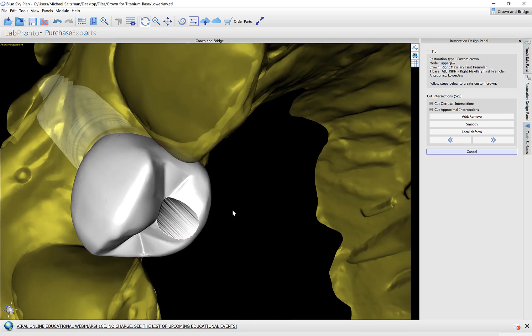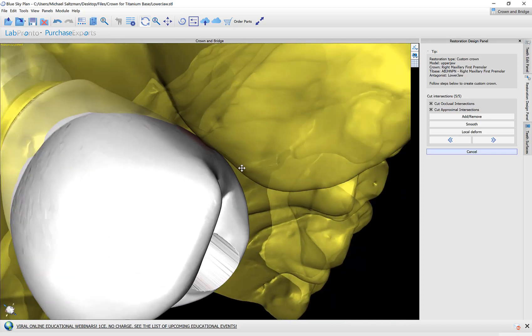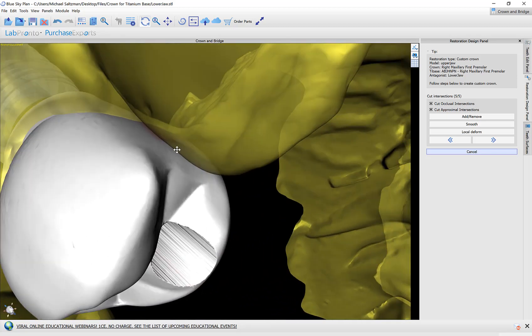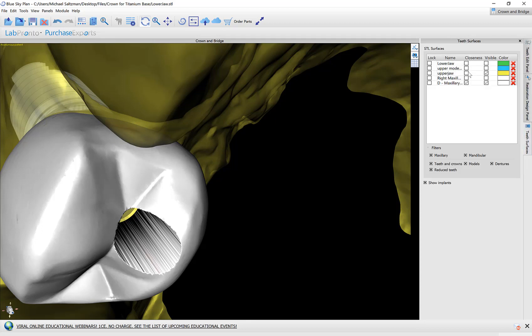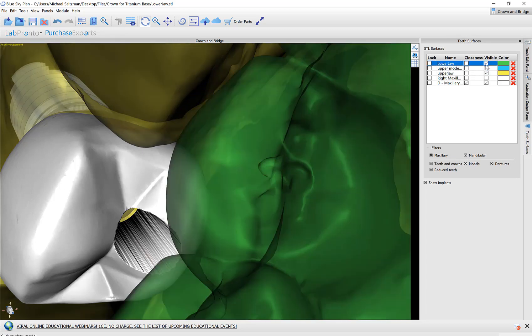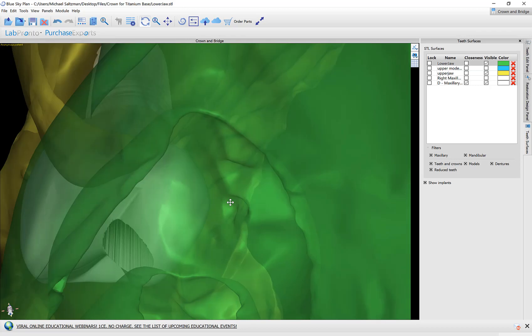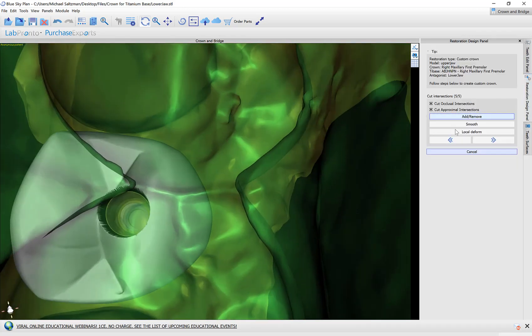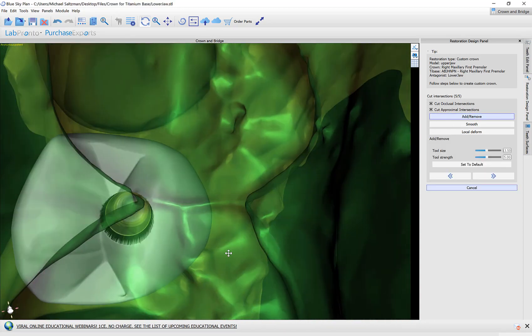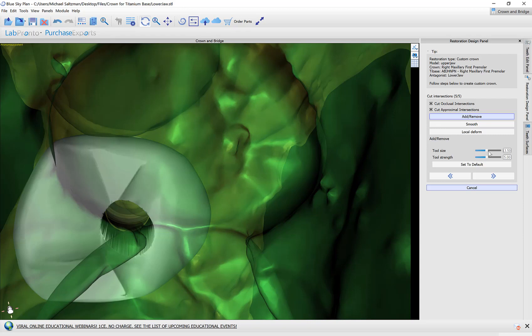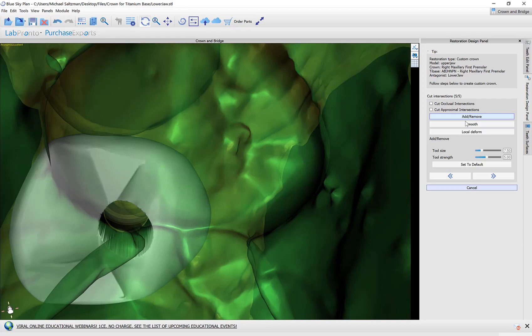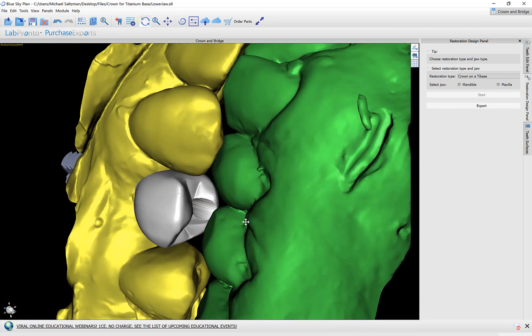In the final step we are able to fine-tune the crown. We can see that our contacts has been highlighted in red to show us the contact. We could use the editing tools if we want to go ahead and edit the tooth and change that. You can also turn on the opposing arch if you wanted to see how the tooth protrudes or contacts with the opposing arch. And you can actually use the editing tools from this view as well. So if there was a contact that you wanted to reduce then you can just hold down the shift key use your left mouse button and go ahead and edit that. We also have the option of having the software automatically cut away the intersections on the occlusion or their proximal intersections. I'm going to turn those off and then continue to have my crown created.